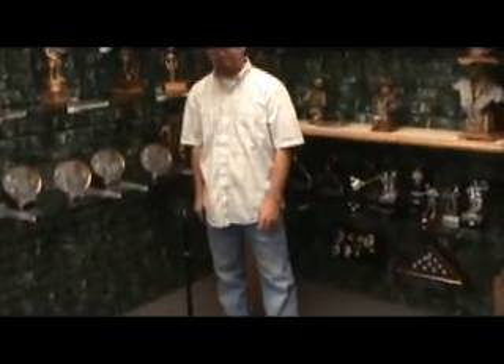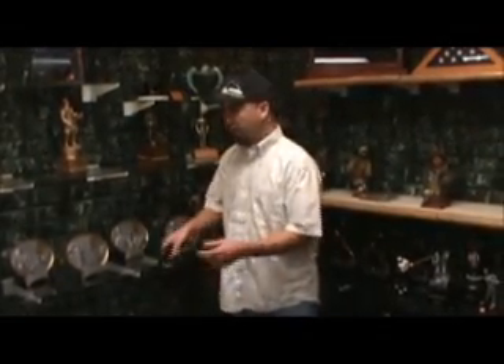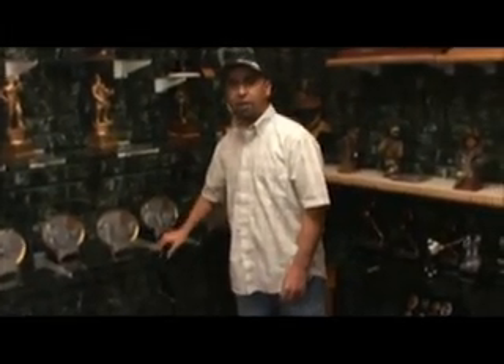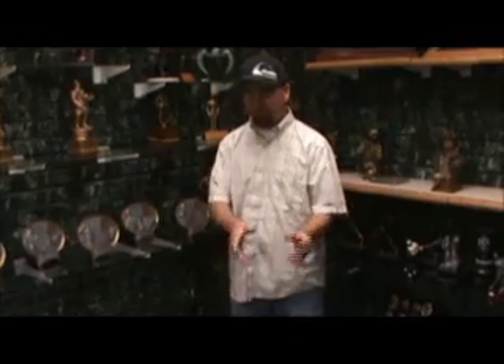That's a really neat feature. When I go in restaurants or anywhere and I'm picking up stuff, I always have to find a place to lean my cane. So if it's standing on its own, I can do what I need to do and grab it again.